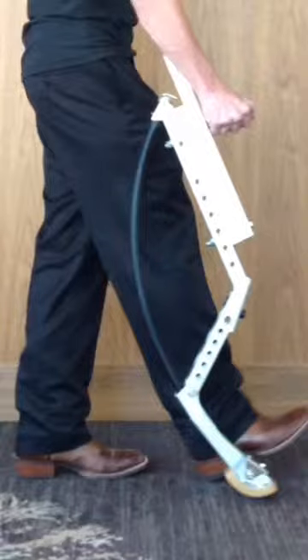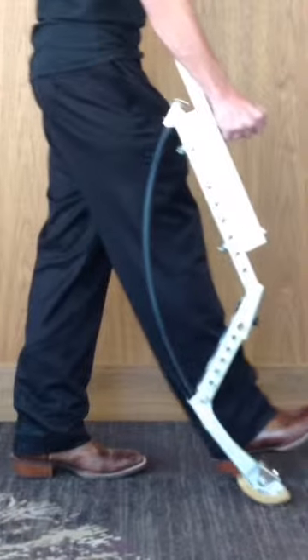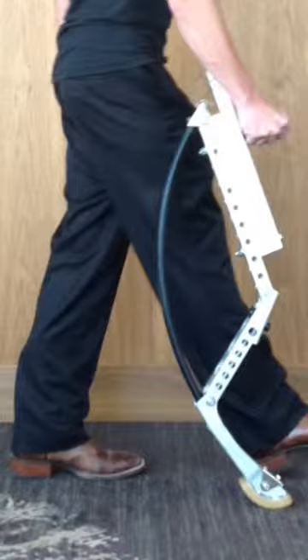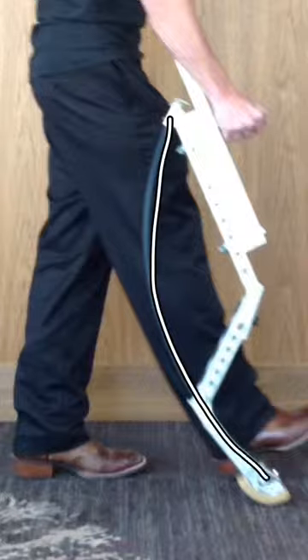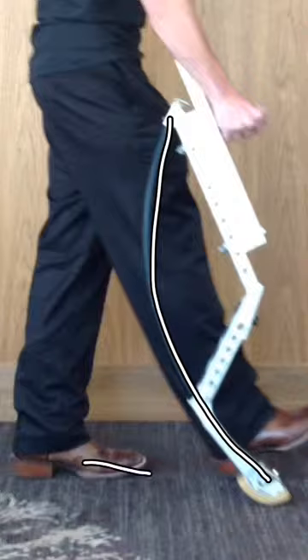Hello, my name is Benjamin Taunt and this is my crutch design in motion. As the crutch is standing here, you can see that the arc, highlighted in white, is before any force or weight is added.